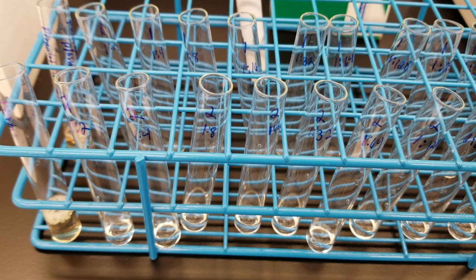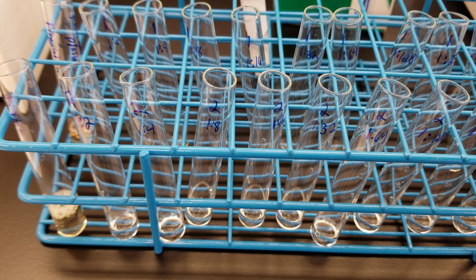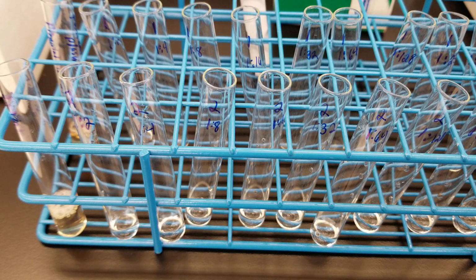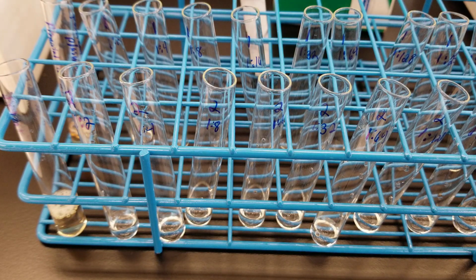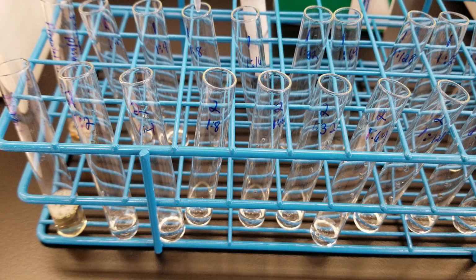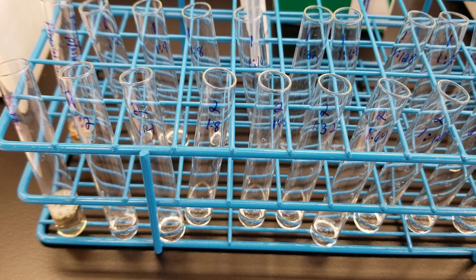But we're going to be running them in parallel to make sure that any differentiation from the first testing that was done is not due to clerical error or anything. So, like QC, if you run it at the same time in the same way as the patient, you're making sure that your experiment is accurate. That's, you know, the scientific method. So same thing here.